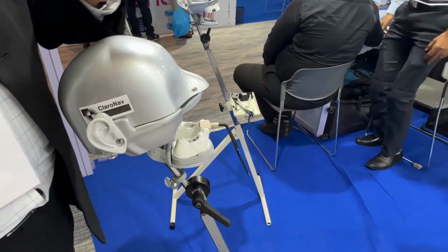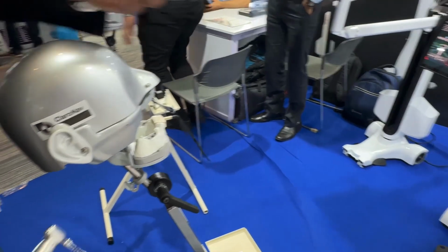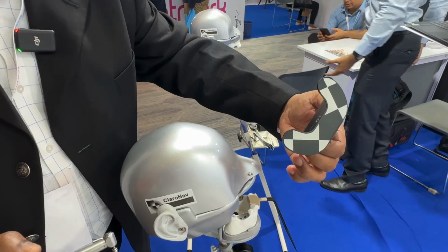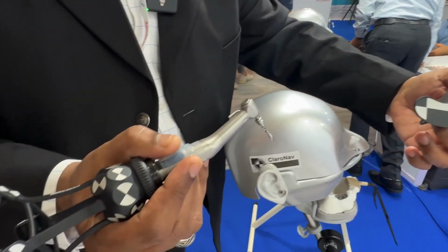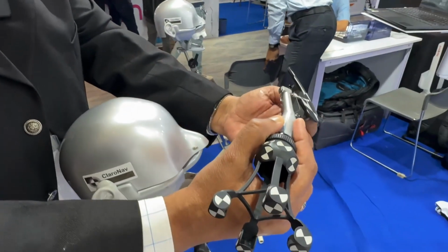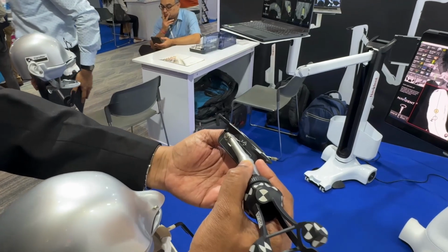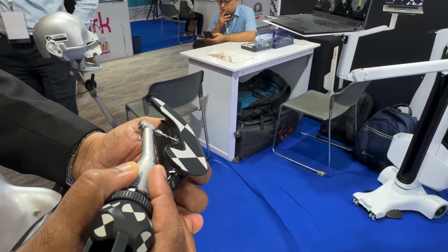The next step, once both systems are merged, is a calibrator. This is a tiny device, and any instrument you are drilling with in the patient's oral cavity uses a calibrator. I'm going to show you how this works. This is a calibrator. This drill I'm planning to use for placing an implant, so I am calibrating this tip.